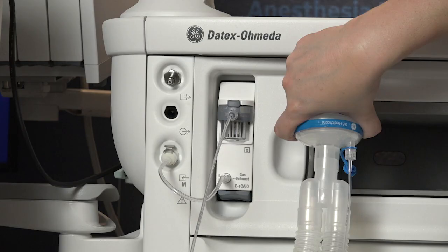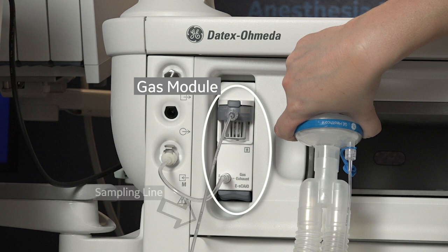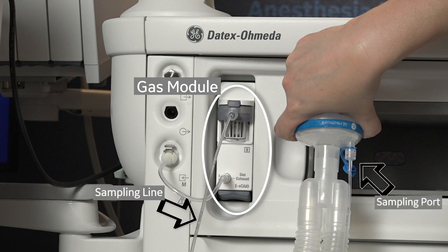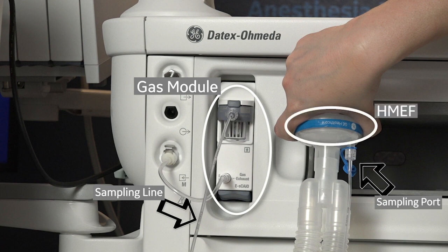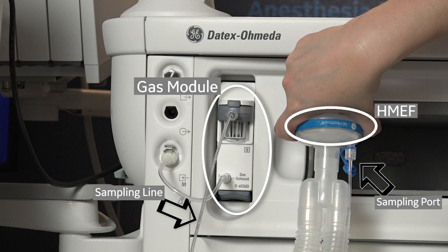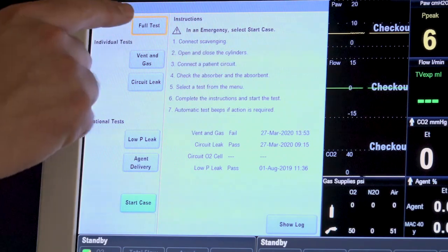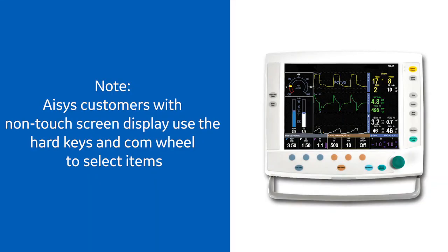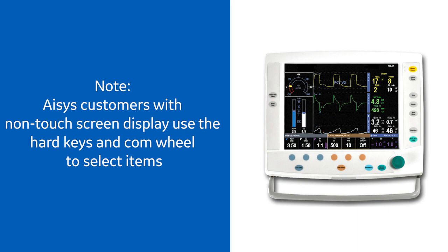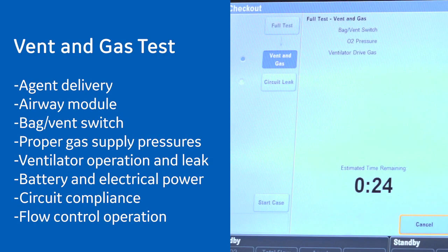When using a GE Healthcare respiratory gas module, make sure to connect the sampling line to the sampling port proximal to the anesthesia device with respect to the heat moisture exchange filter or HMEF. Follow the on-screen instructions and select full test. The full test is broken up into two parts: vent and gas, and circuit leak.